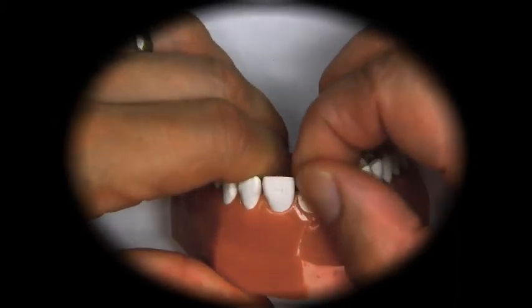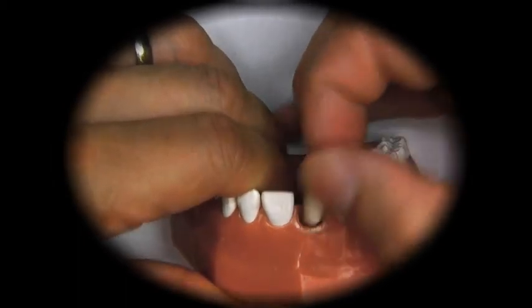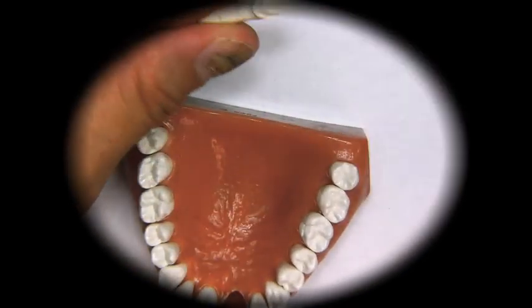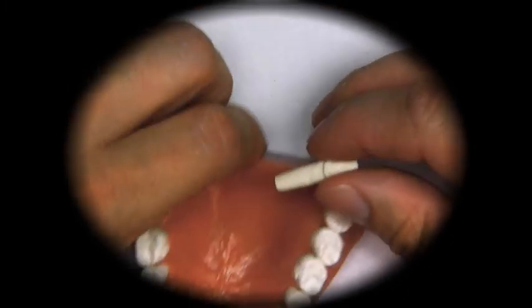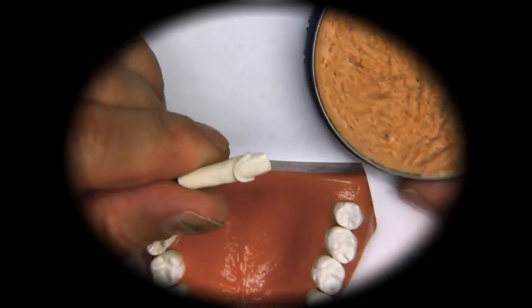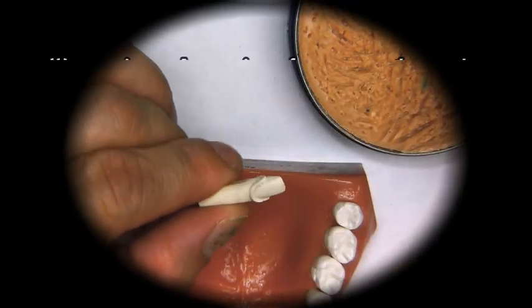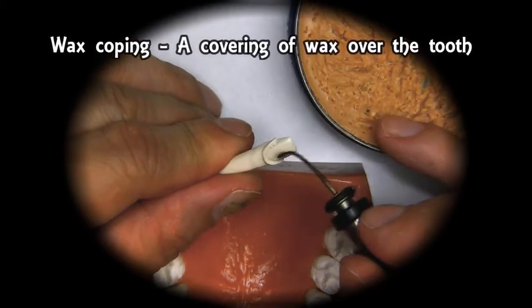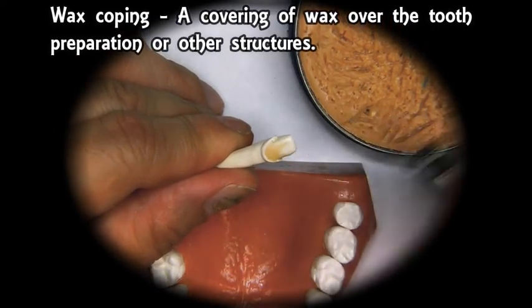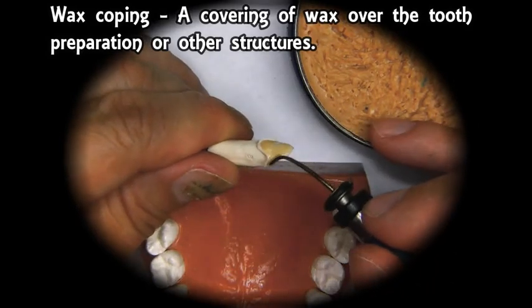The first step we will take is to apply a coating of wax on the preparation area, using the waxing spatula. We're going to place an even layer of wax over the surface of the die, making sure that we do not go over the margins.